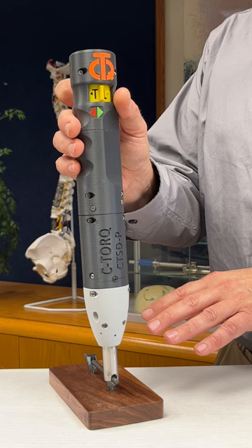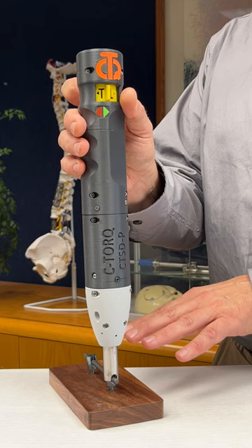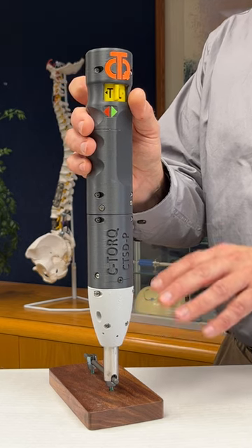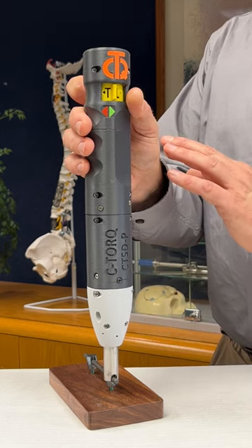Please note that no stabilization with another hand or another instrument is necessary to prevent rotation or stressing of the other implant components. Furthermore, the tightening torque and counter-torque are applied by the instrument, not by the surgeon's hands or the surgeon's fingers.